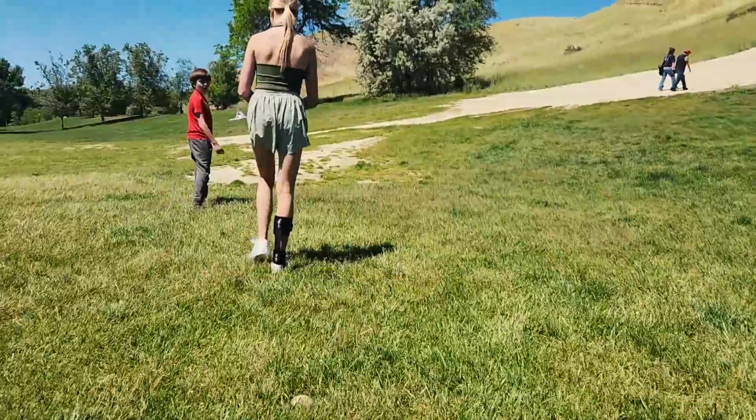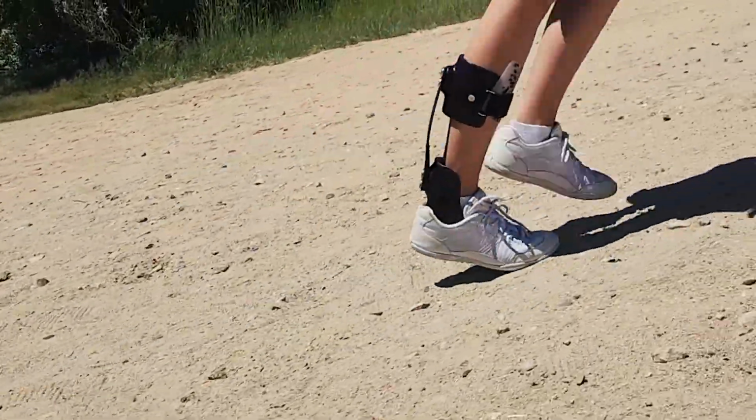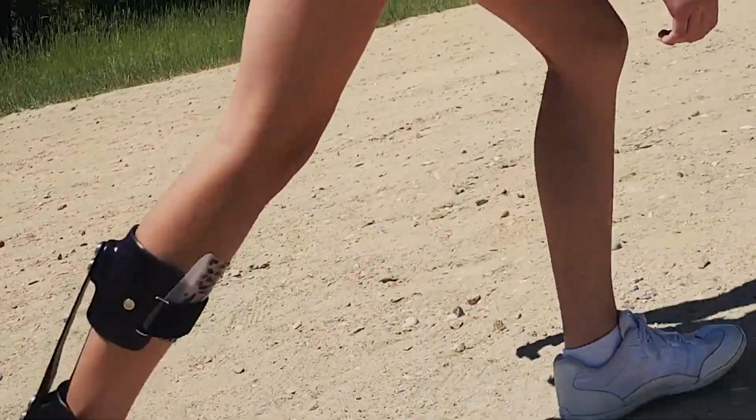For example, if I have a patient who has spina bifida, they frequently present with more of a crouch gait. With that, I'm going to tend to use more of a stiff strut and lean more towards the rigid or extra rigid options. For an individual who might have an isolated drop foot, I would consider more of the extra soft, soft, or medium options to still allow them to engage the muscles that they do have activation in, while also supporting the weakened lower extremity. When using the mini strut, keep in mind that the soft option is very soft. So with that, we would only want to try to help support some weakness in the foot and ankle section and not be using the soft strut for an excessively crouched gait position.